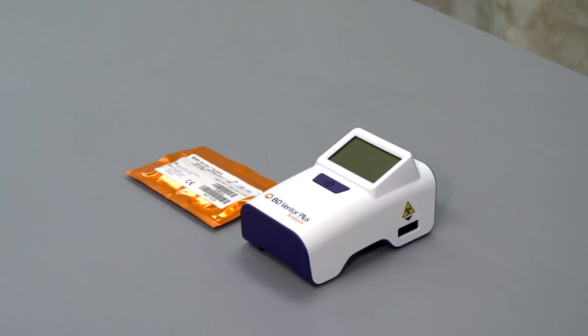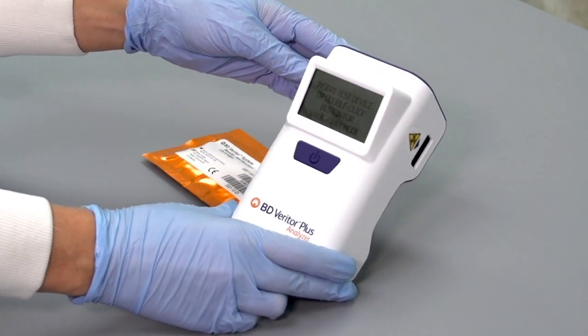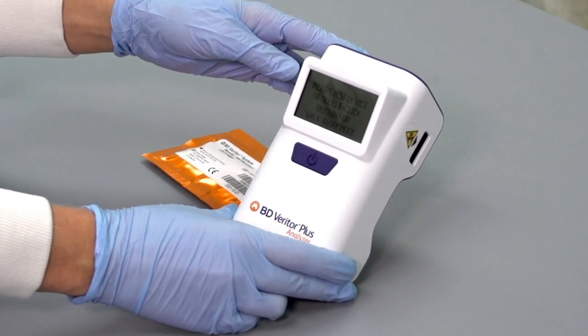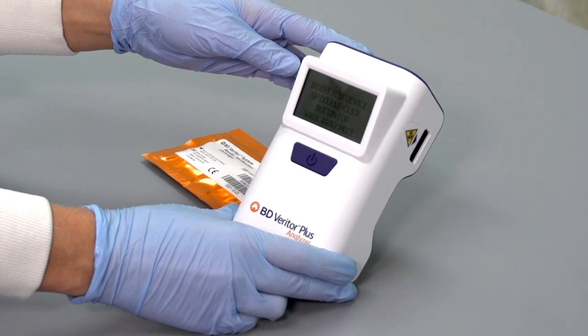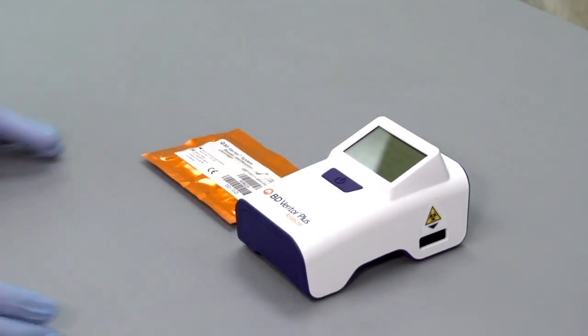This instrument internal system check is carried out every time the instrument is powered on. The screen will read insert test device or double click button for walkaway mode, indicating it is ready for testing in either Analyze Now or walkaway test mode.